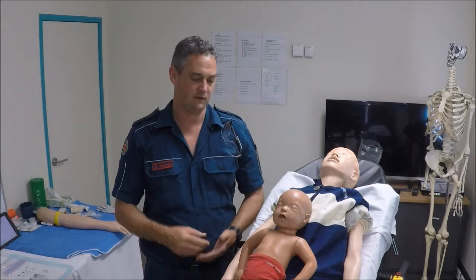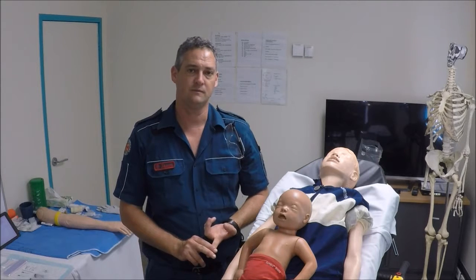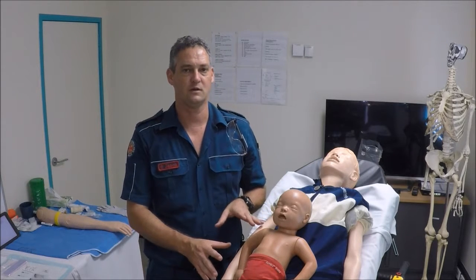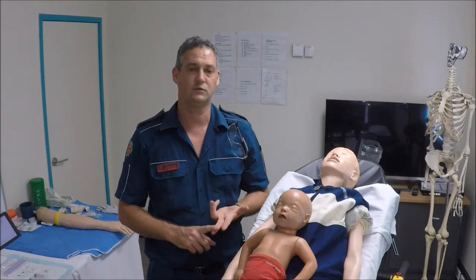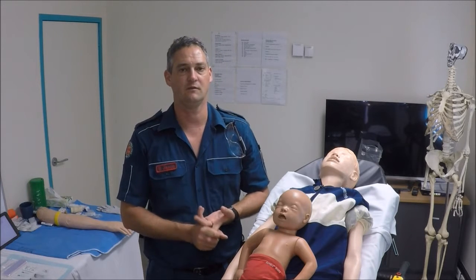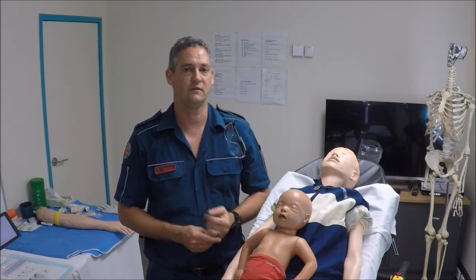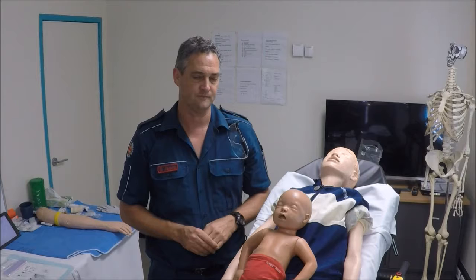Today I'll talk about patient preparation, the preferred sites for cannulation in the paediatric population, and I'll also talk about some of the tips and tricks and modifications to standard techniques to facilitate the best chance of successful IV cannulation within the paediatric population.